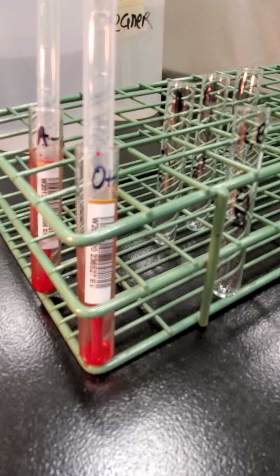For the other hypothetical reactions, you don't have to record a unit number, because obviously you don't have one. So you're just going to go by the unit type that I have listed and decide what tubes you need to test and the anticipated reactions.